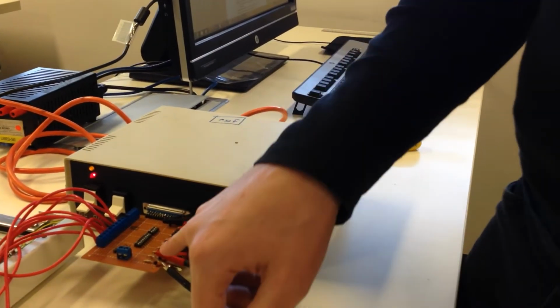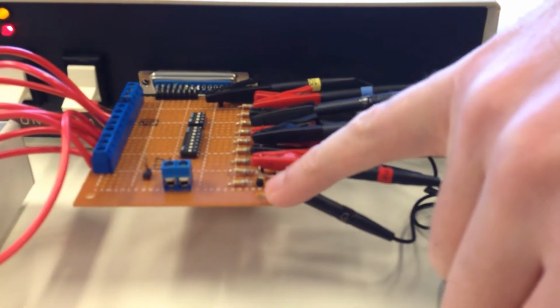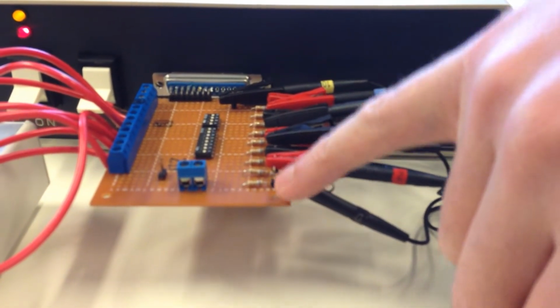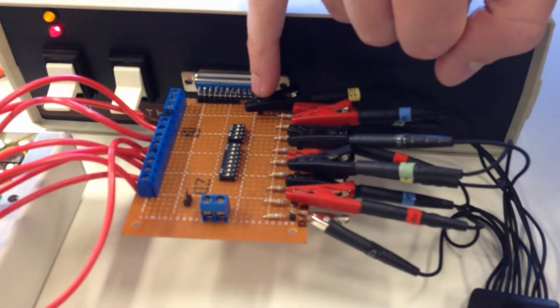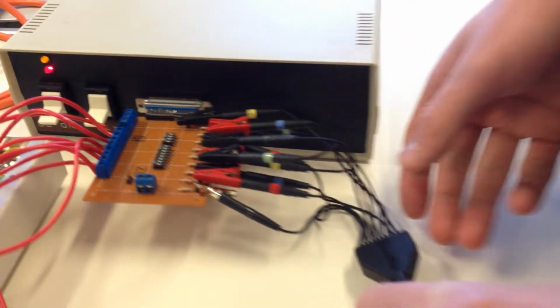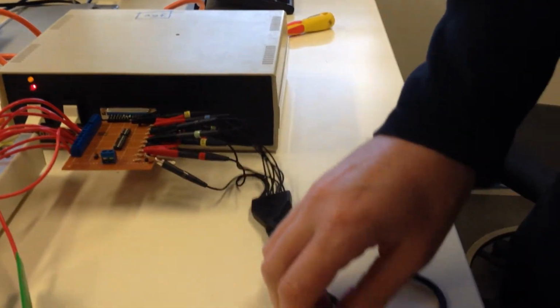The current comes out from this pin here, which has another electrode or wire connected to it, I'll talk about shortly, and is retrieved through this 10th pin here. Connected to those two pins are these wires and a bunch of other wires that I'll tell you about shortly. They go down through this black cable, and they come out in the conductance catheter.